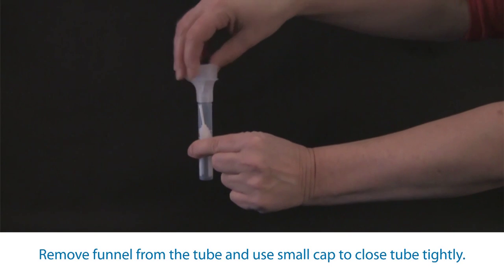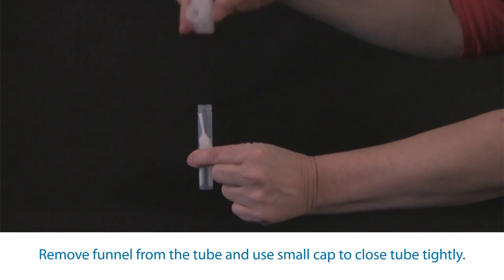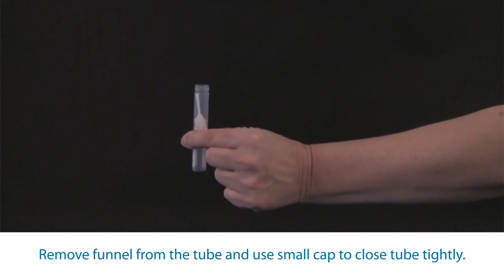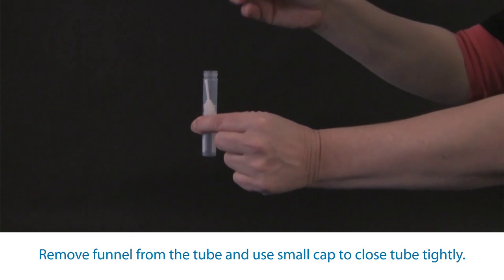Continue to hold the tube upright while unscrewing the funnel from the tube. Use the small cap from the collection kit to close the tube tightly.